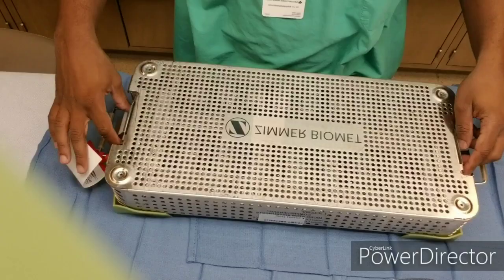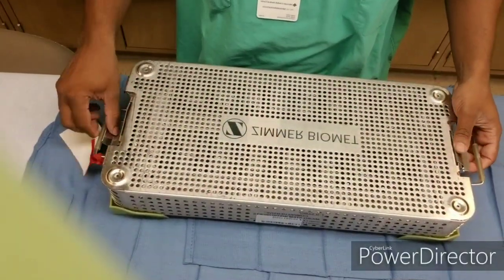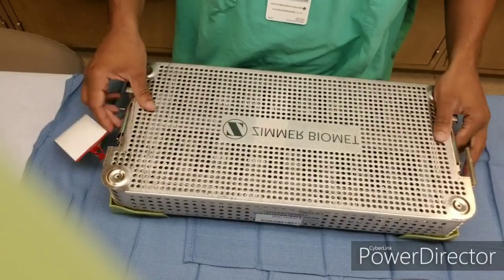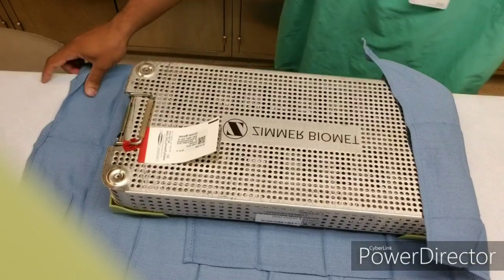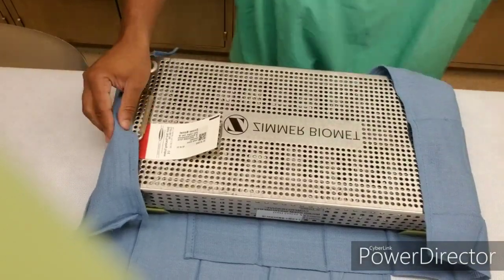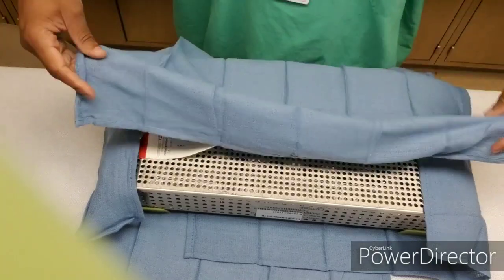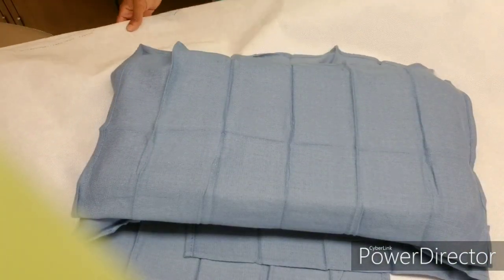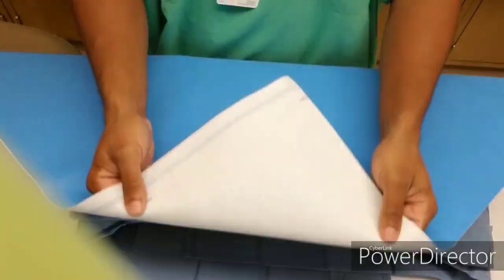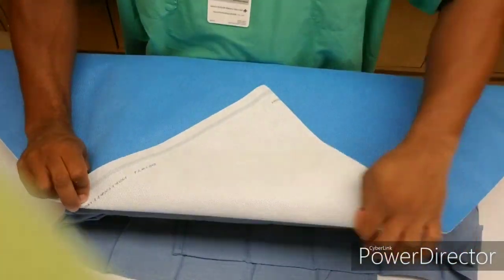Okay, so let's walk through this process. We got the tray here. As you can see, the green filters are on the corners with the towel on the bottom. Everything was done before wrapping. Now as you see, this particular hospital loves a towel on top. So as you see, I go partially over — flap there.